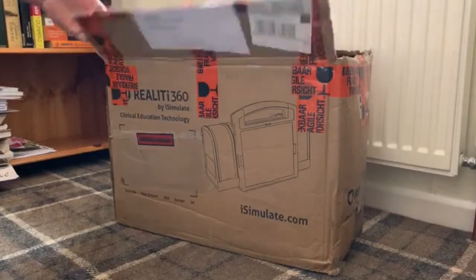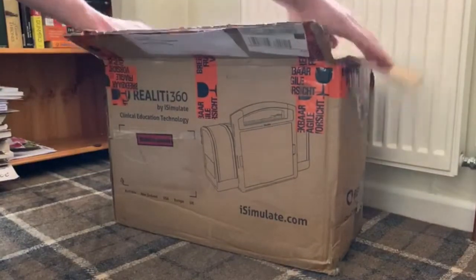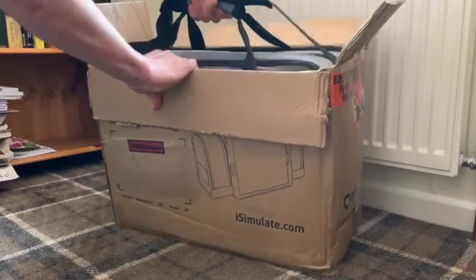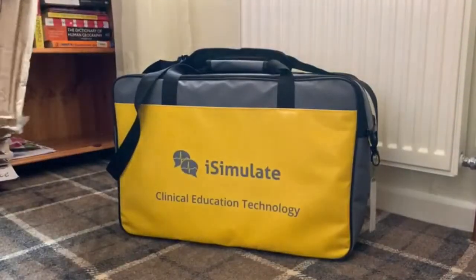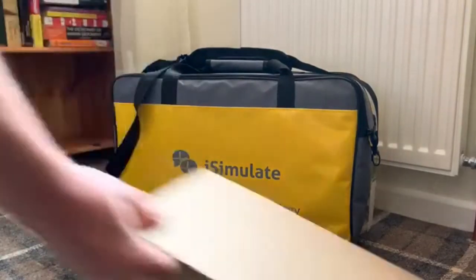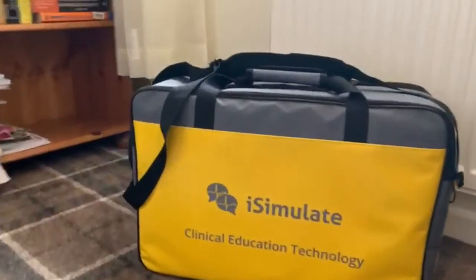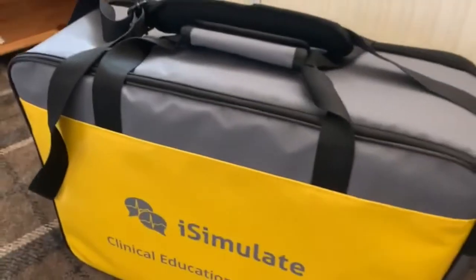This is how it arrives from them — just a simple packing lid. It's pretty neat.